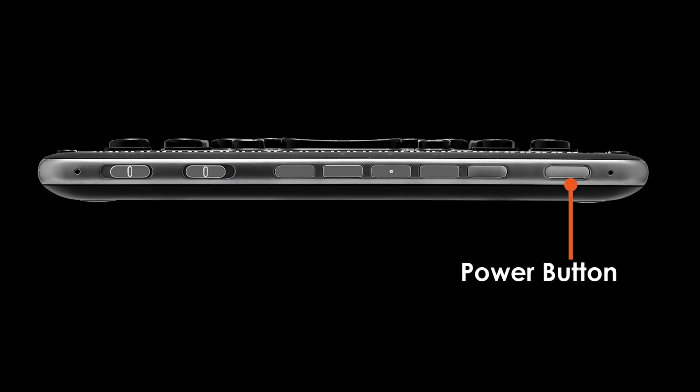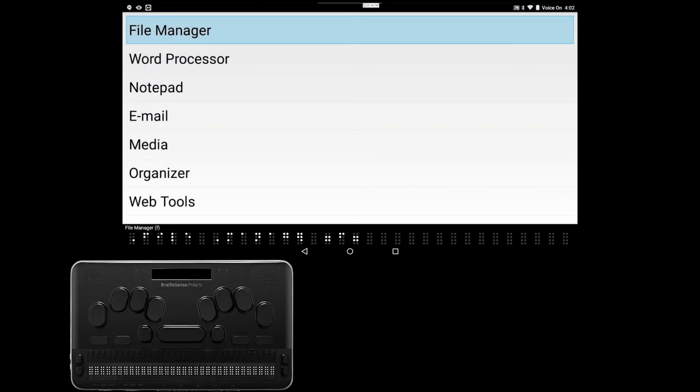Before we do anything, let's turn the Polaris on. To do this, locate the power button, which can be found on the front panel of the Polaris on the far right side. Press and hold the button until you hear a beep and feel a vibration. I have my Polaris turned on, and the first thing that is showing up is the main menu. At the top of the main menu is File Manager, so if you're following along and have File Manager showing on your Braille display or can see File Manager on your screen, then you're at the right spot.